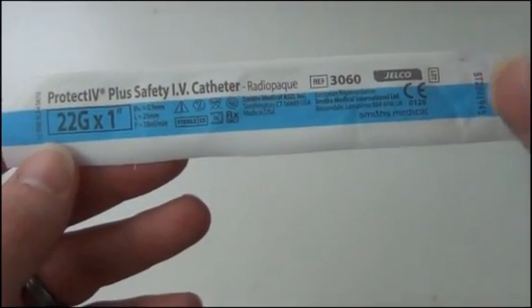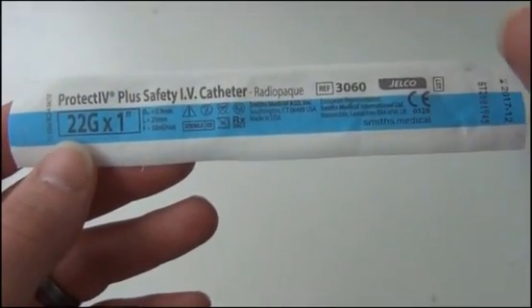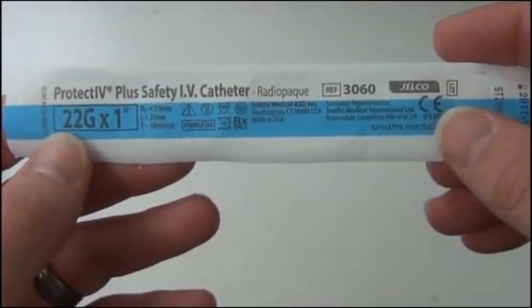An interesting thing about this, this is measured in gauge, so the 18 is actually the biggest and 22 is actually smaller.